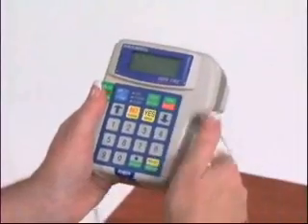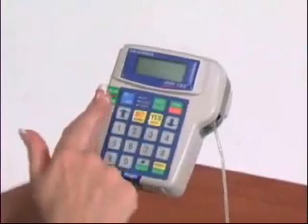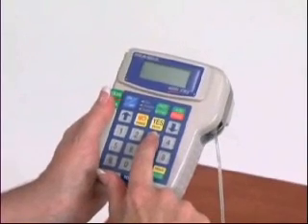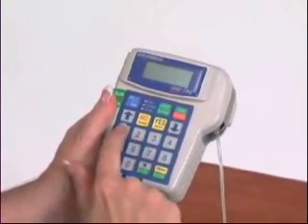The top two rows or eight keys of the keypad are most important. They include the on-off, run-pause, yes-enter, no-change, and the up and down arrow buttons.